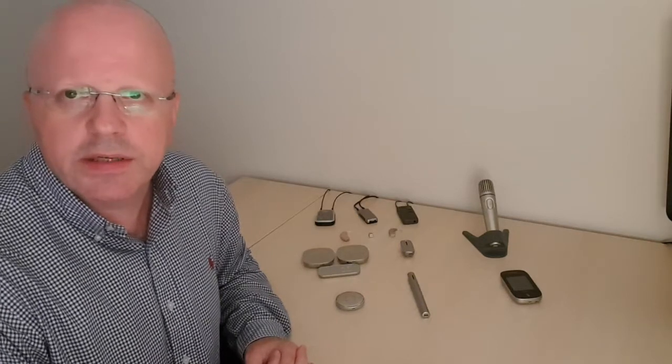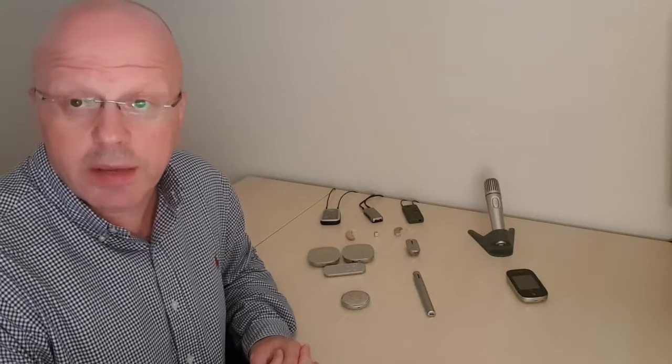Hello, my name is Paul Minnakin from FM Hearing Systems. Today I'd like to talk to you about Phonak Roger systems and how they can help you to hear better, how they can help your hearing aids to perform better in difficult environments.